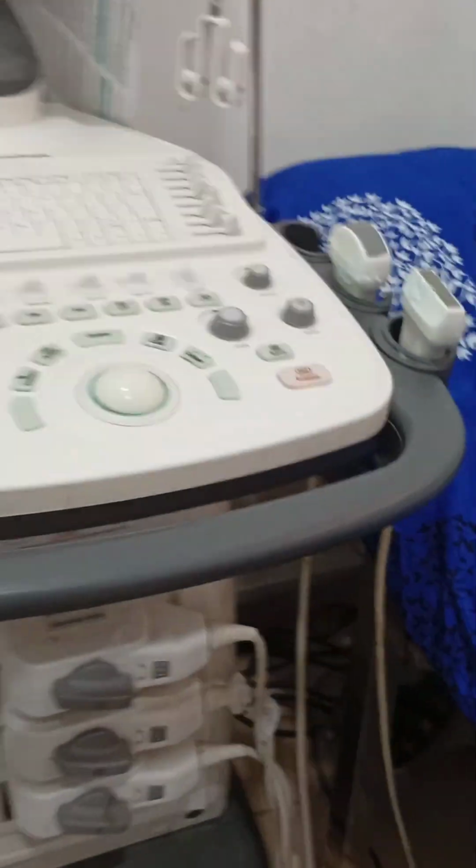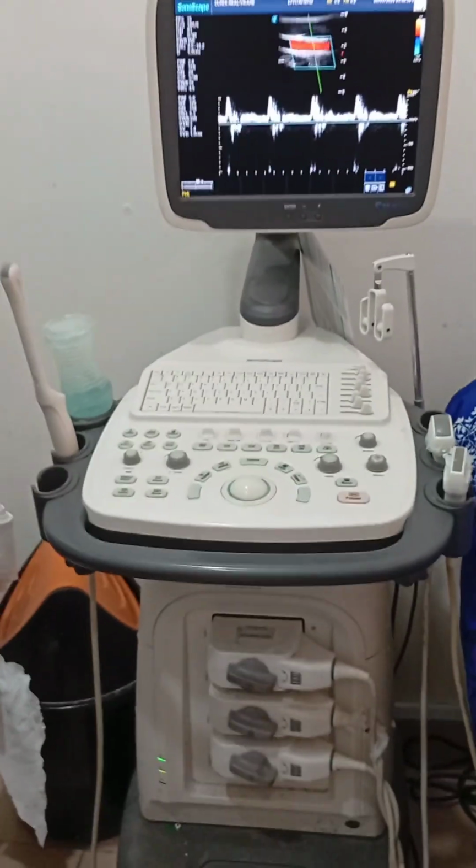And also the PACS, which is called the Picture Archiving and Communication System, where you can get all your images and transfer them to different colleagues for review. And the DICOM, which is the Digital Imaging and Communications in Medicine. That is the highest of them all. What it does is to store images and transfer images.